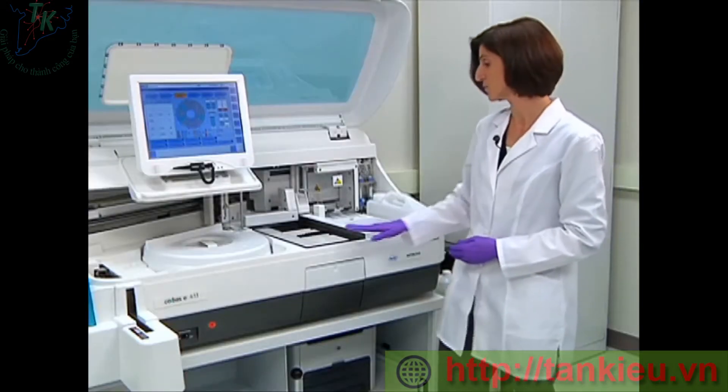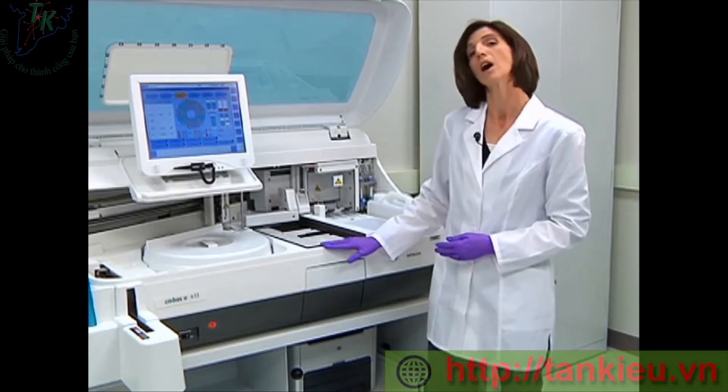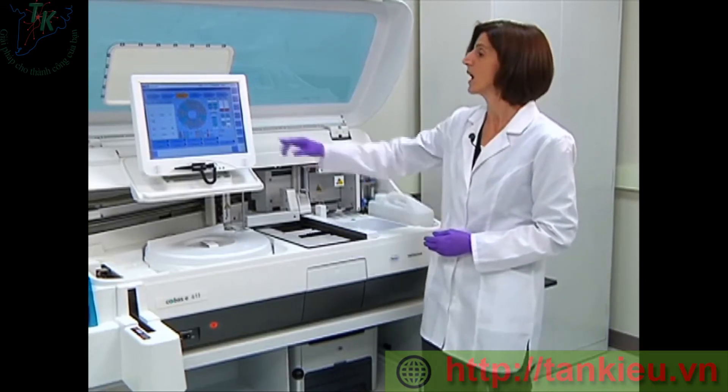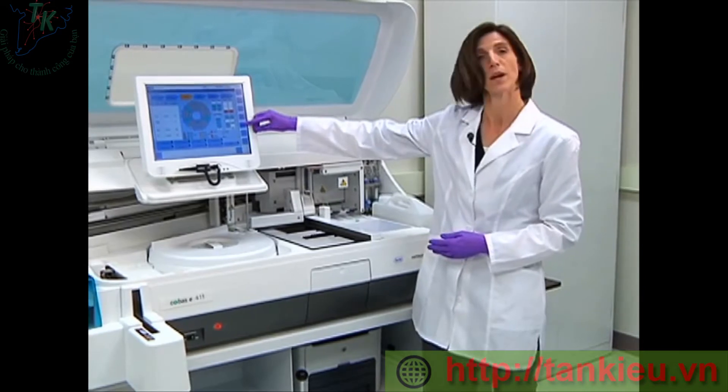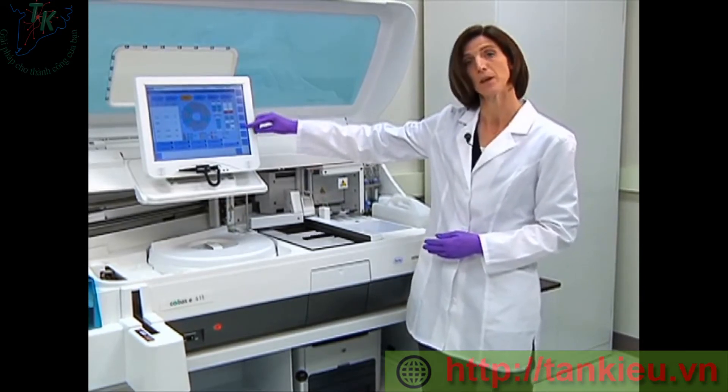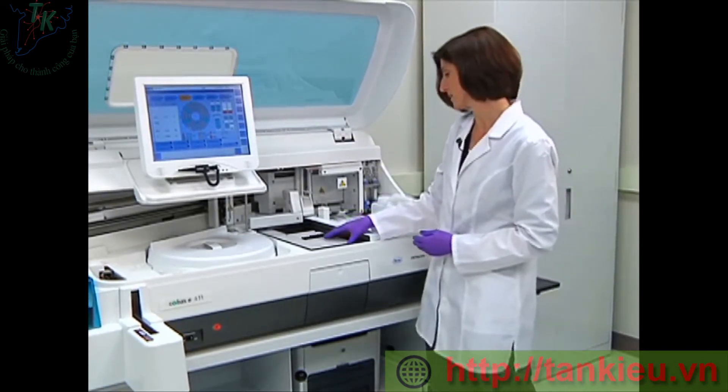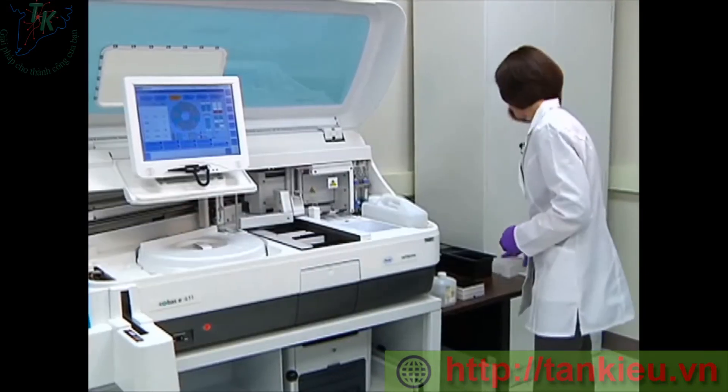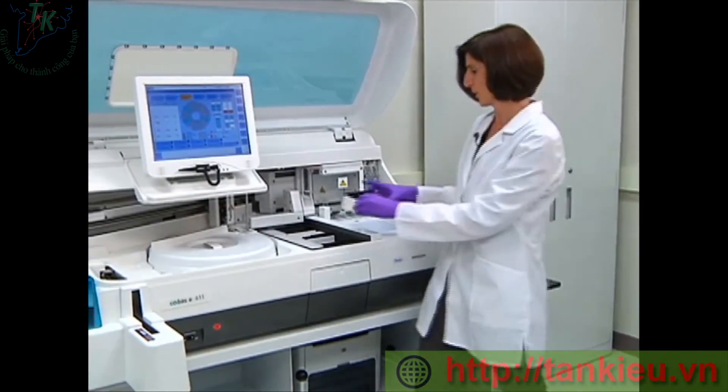Now we're ready to look at our inventory of our cups and tips. On my system overview screen, I can see that I have a tray of tips that is currently empty. So I will remove the empty pack and then load a new one.